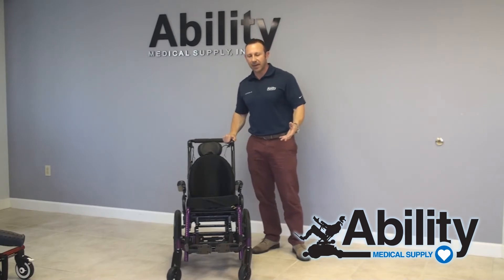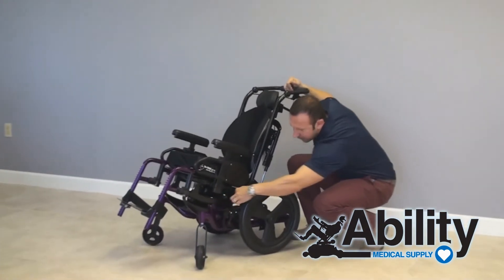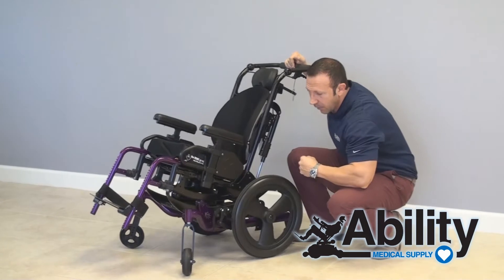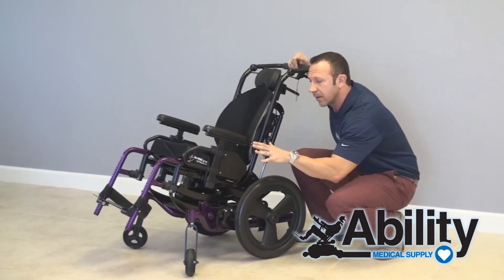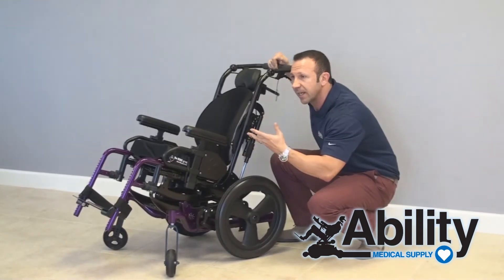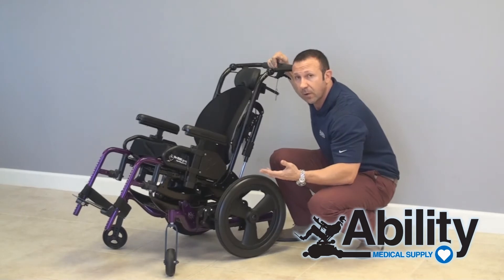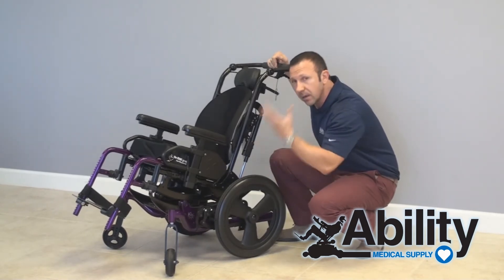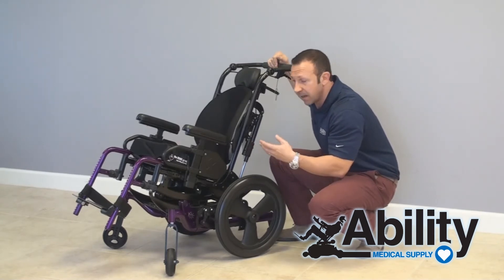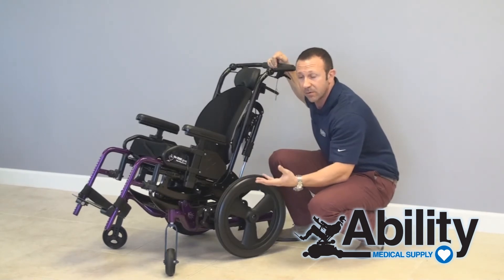This technology is about this rotational device here, allowing the chair to tilt up to 50 degrees, while keeping the center of gravity placement right above the base, preventing the chair from taking up too much room around the house. Most importantly, it keeps the weight on top of the base to prevent any safety issues — placing the weight too far to the back or front will cause a system like this to tip over.